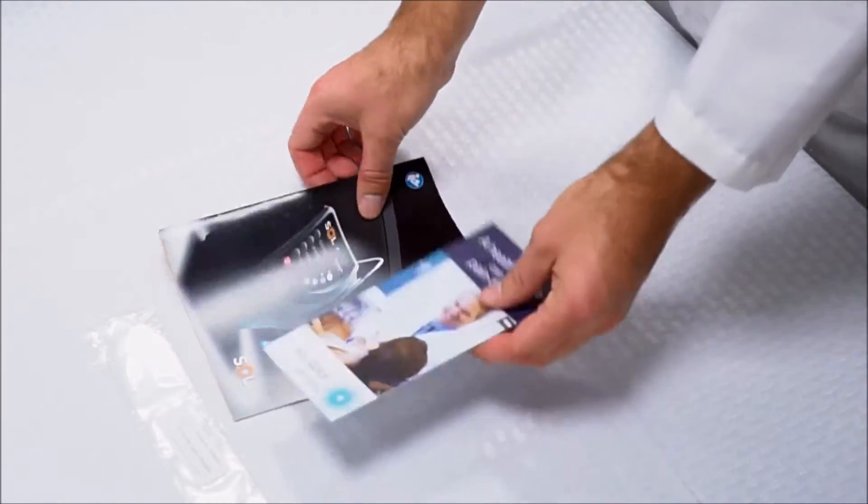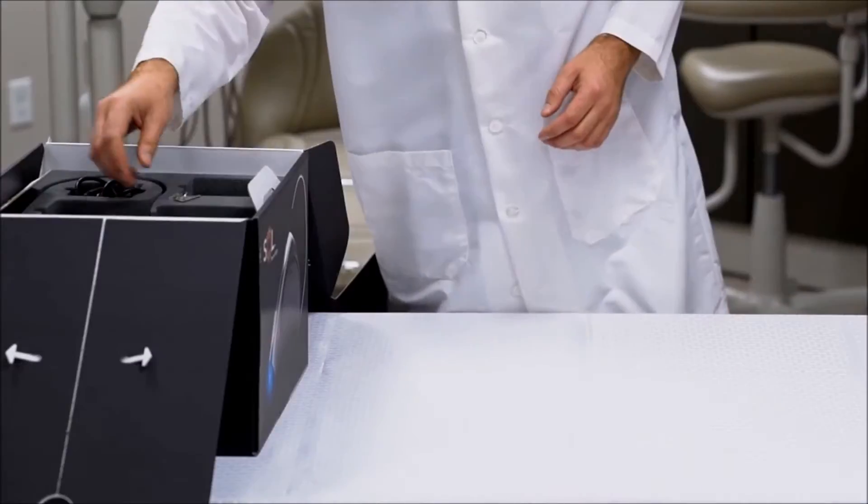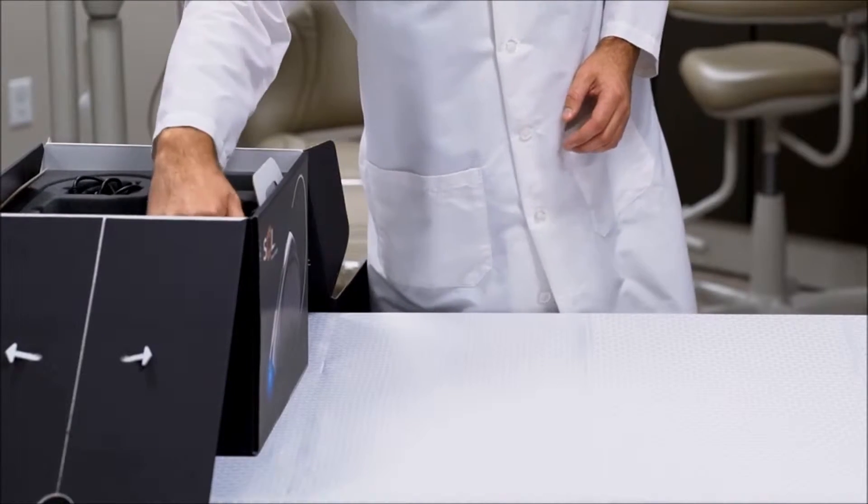Now, we're going to go through the actual Sol laser unit. So inside, the first thing you're going to find is your wireless foot pedal. The wireless foot pedal comes pre-paired to your unit, so you should be able to use it right out of the box.